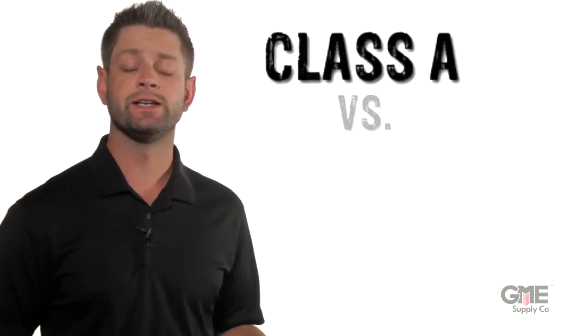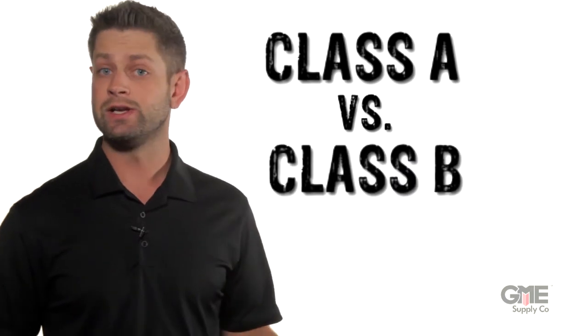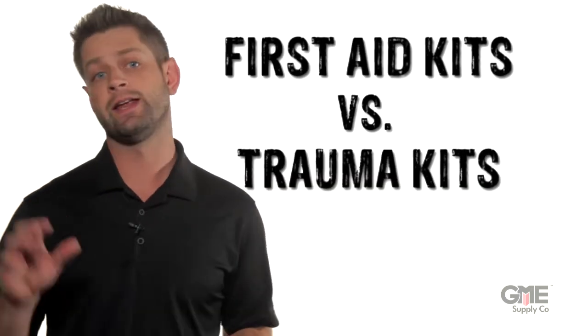In this video, we'll explain the differences between Class A first aid kits and Class B first aid kits, as well as the differences between a first aid kit and a trauma kit. ANSI spells out the minimum requirements for the contents of a first aid kit in their Z308.1 standard. If you need more info on that standard, including how to decide between a Class A kit and a Class B kit, as well as first aid kit subtypes, watch the link at the end of this video.